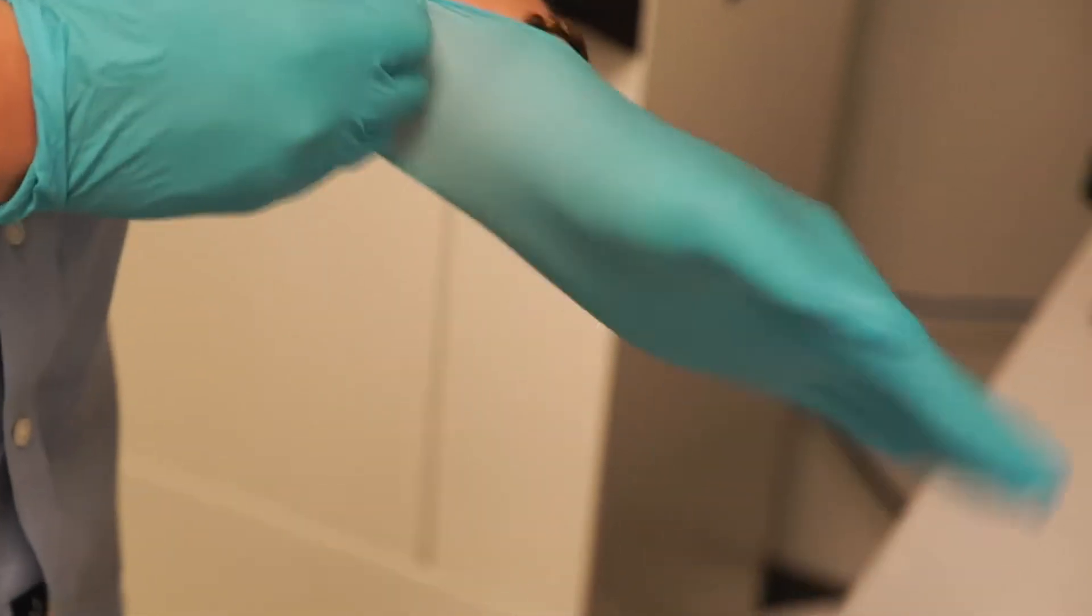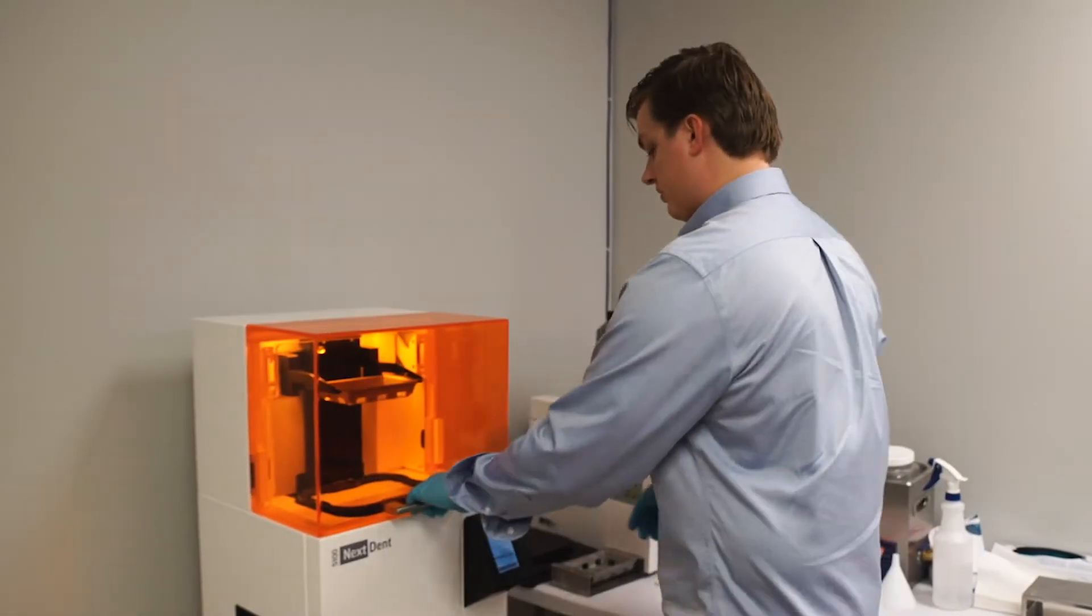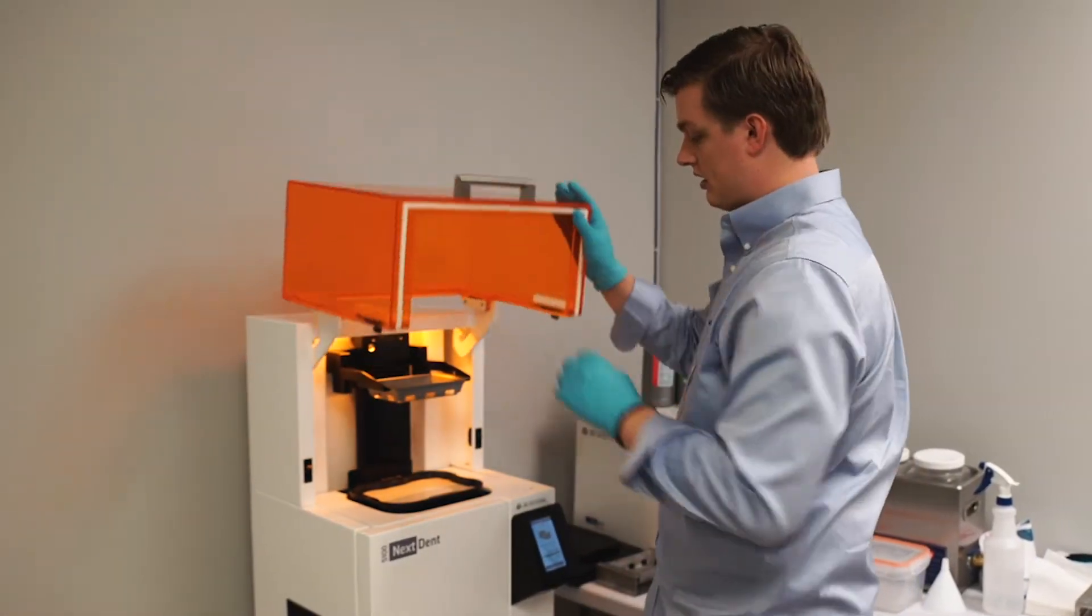As a digital laboratory I have to have a portal for them to send the scans to, and for the longest time I would have to outsource that file to get printed before I could even start on my case.